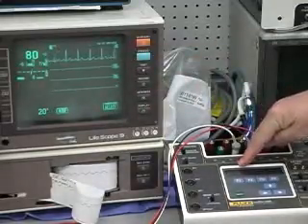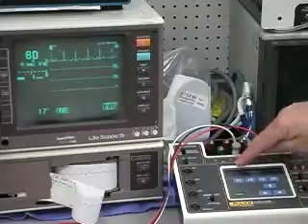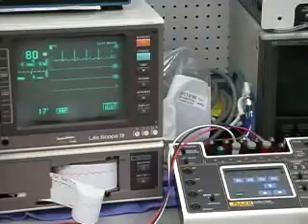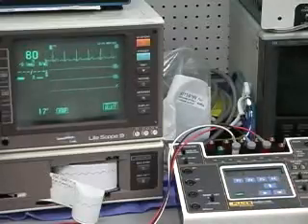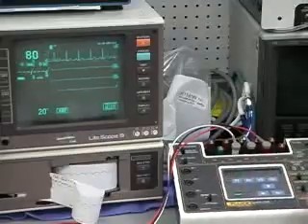Sure. And then you can stop this and hit hold, look at the elapsed time and how many PVCs occurred, and you'll see how many that this system caught. So just a very simple way without having to use the computer or anything for programming. Do it all here manually, with the analyzer. So in this case, it's really more of an analyzer than a simulator, but it is really doing both.